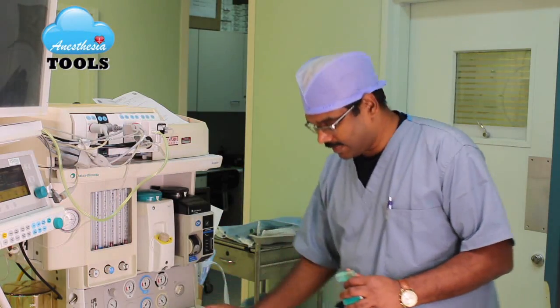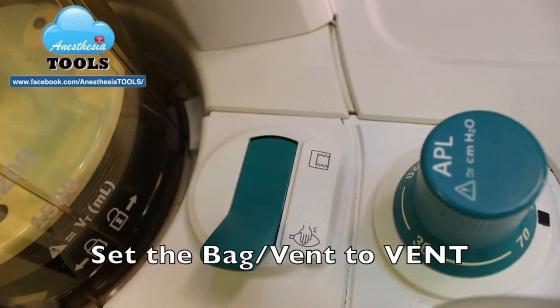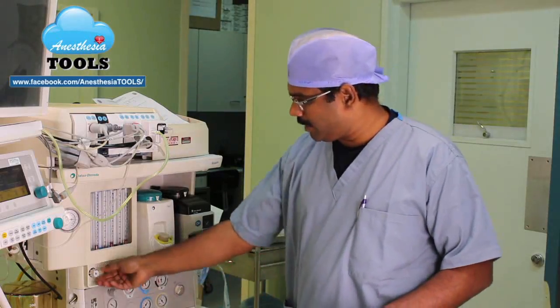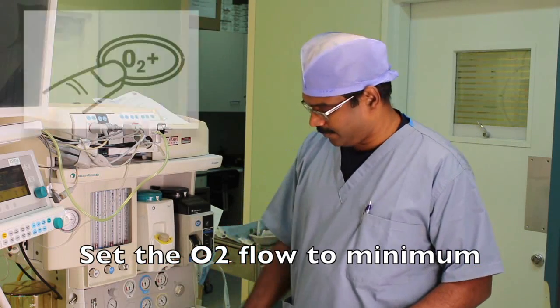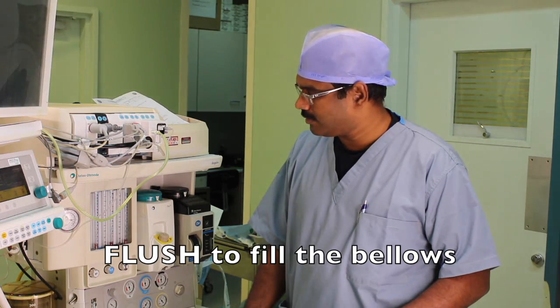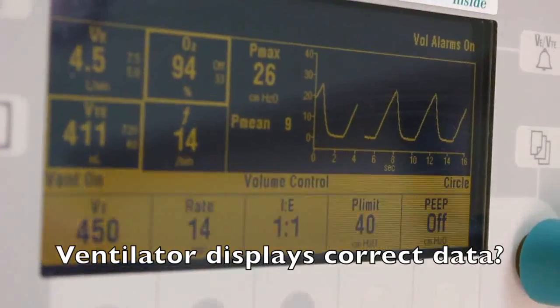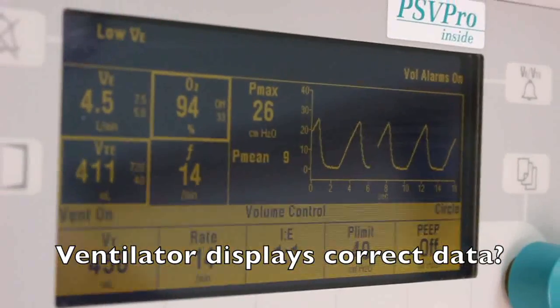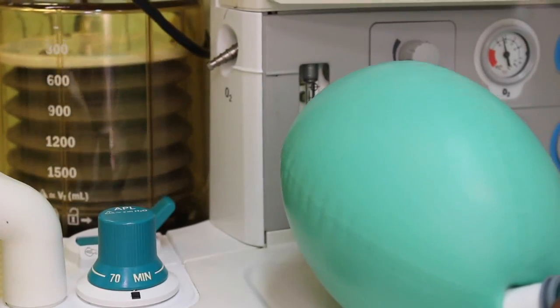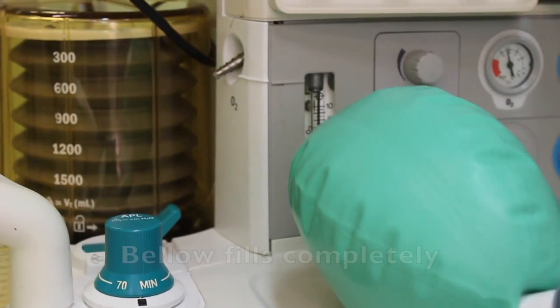Now take the test lung and connect it to the patient end of the circuit. The bag selector switch should be changed to ventilator mode. Minimum oxygen flow meter settings are required. Using the flush, fill the bellows — the machine ventilator now starts. Check whether the ventilator displays correct data, that end expiratory pressure reads zero, that the bellows inflate and deflate, and that the bellows fill completely.